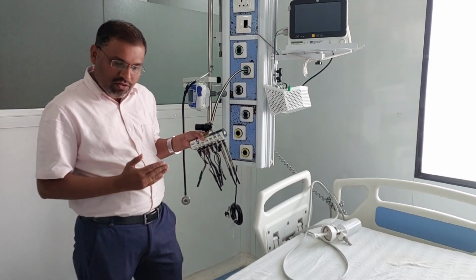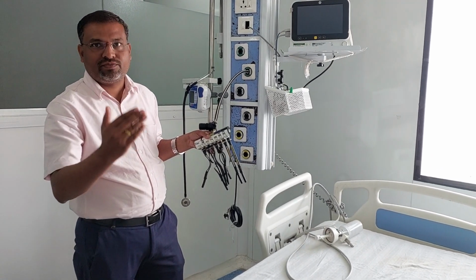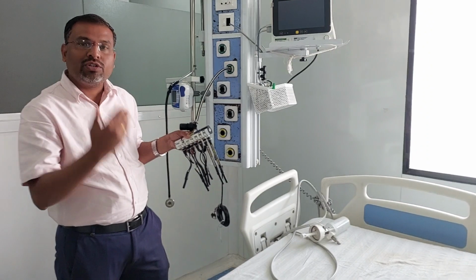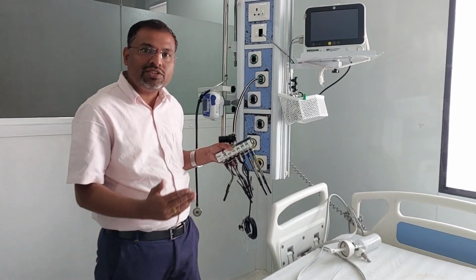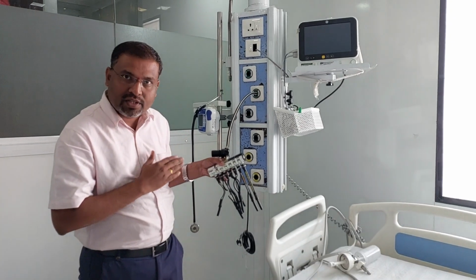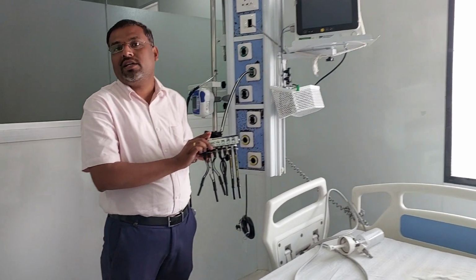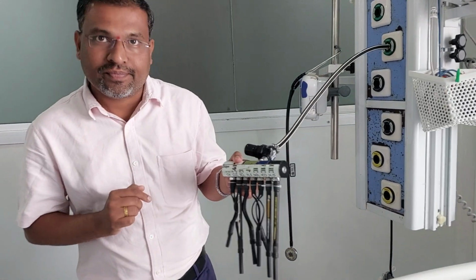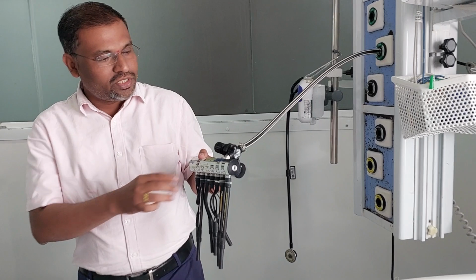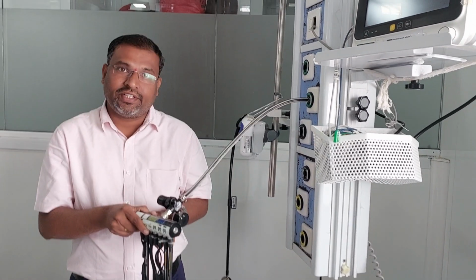They have set a particular range which is suitable for use. If such contents are more than the range, it is difficult to use for patients, and we have to take necessary actions to remove that content, right? According to NABH protocol, such testing is mandatory once in the year. In this way you can test the oxygen supply quality.